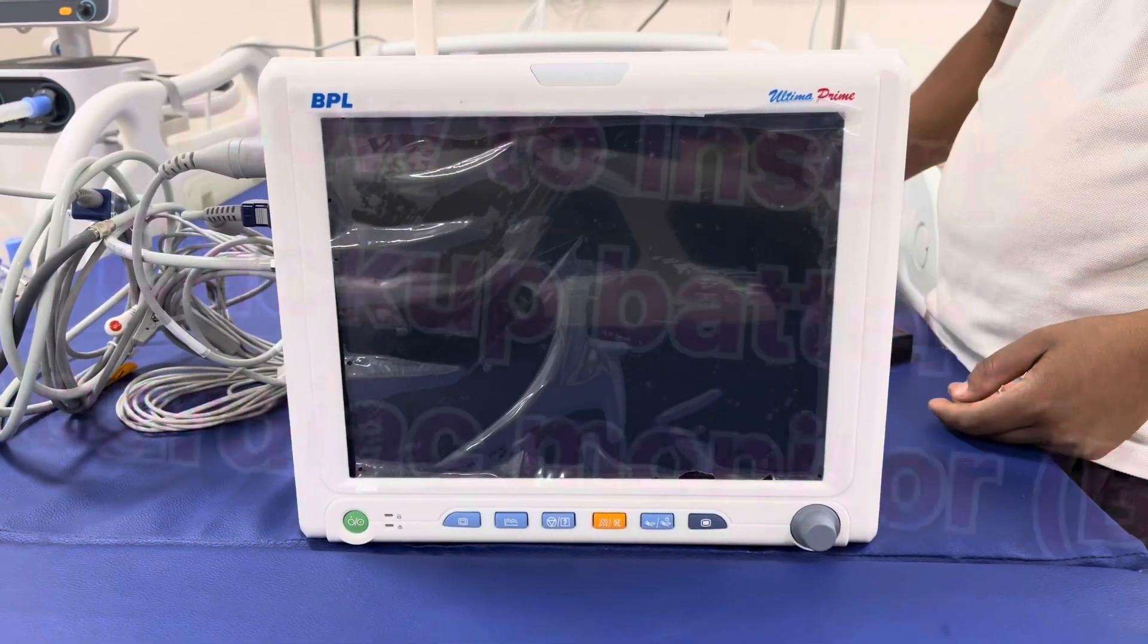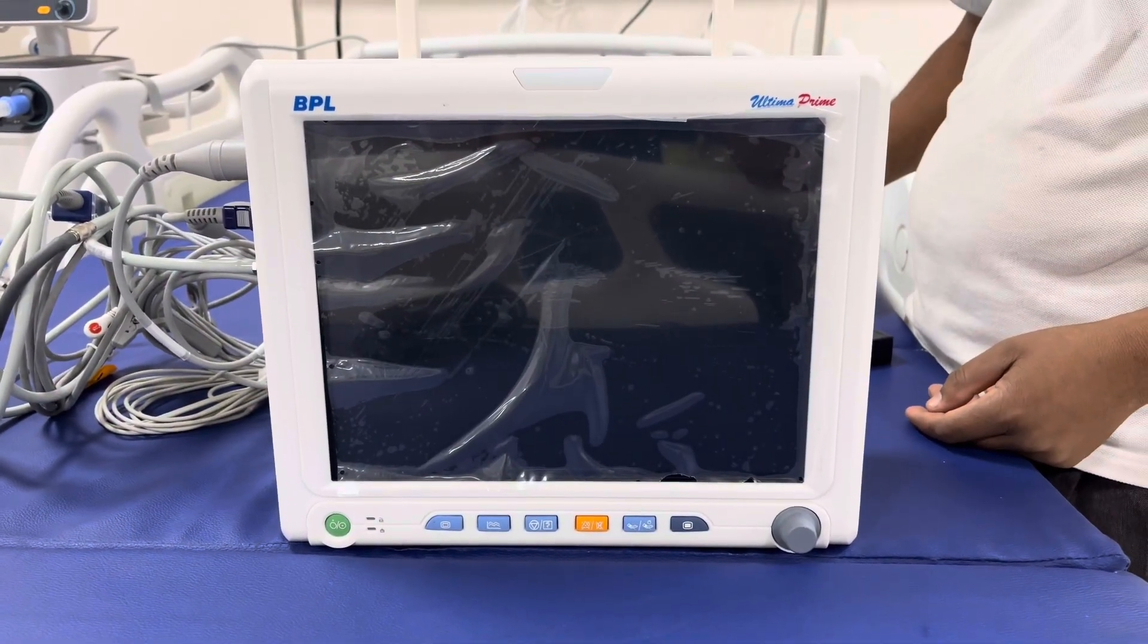Now we'll show you how to insert the backup battery into the BPL monitor.